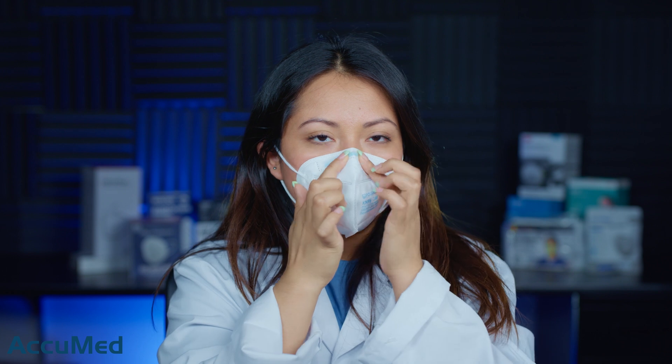The first thing I am going to point out is the collapse here. It does have a really big collapse, and like I mentioned it does have a nice wire, but somehow I am still getting leakage through the nose bridge. These are quite small and they don't fit my face properly, but it is because they are a children's size.